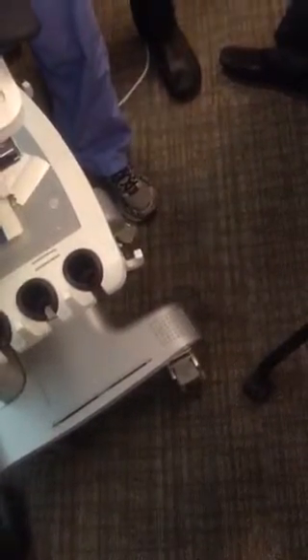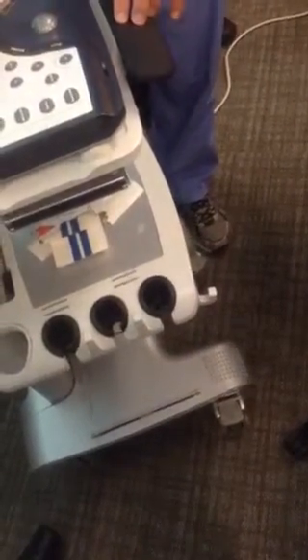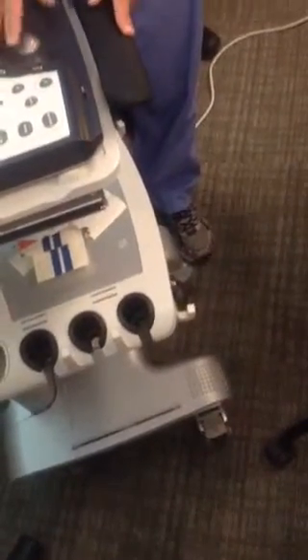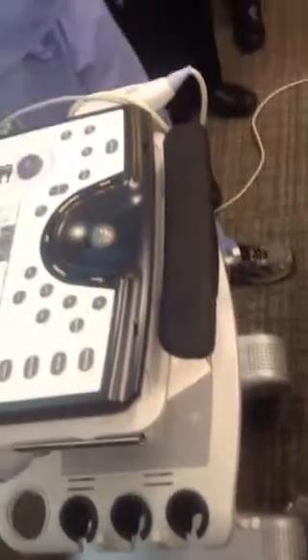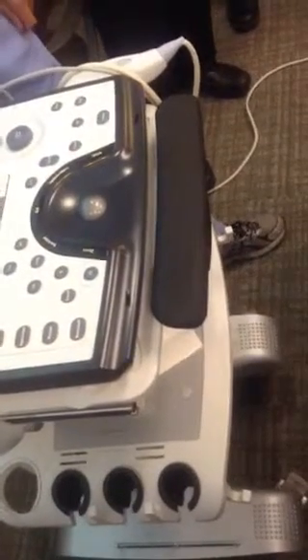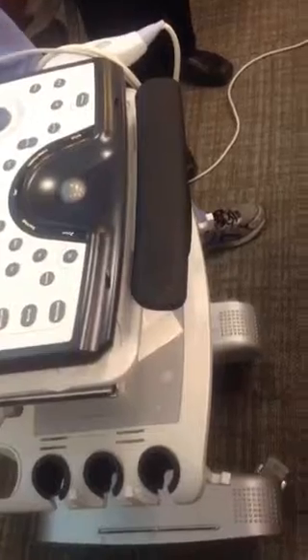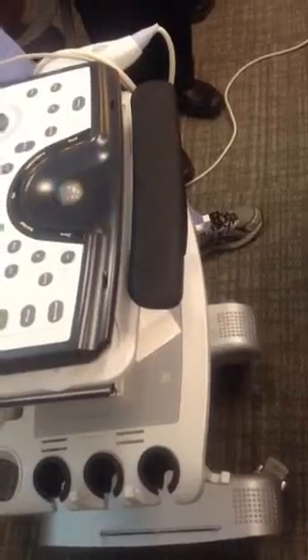Do you guys get that query? So all this is done. I'm just saying this because when I went through it the first time, this will all be done in the Echo lab before you come up and do your patient. So it'll make life much easier, which we'll go through when you're starting the exam in Epic. Epic has to be communicating with this, so this has to be plugged into the wall and on. So whatever pulls up on the patient list, unless you've queried it, it's basically updating that list. So all your patient information flows over. If it wasn't plugged in, you keep hitting query and your patient's not there, it's because it didn't communicate with anything. Right, and there's a limited number of ports in this whole building that will do it. So it has to be done either in Echo Lab or CVPAC-U.